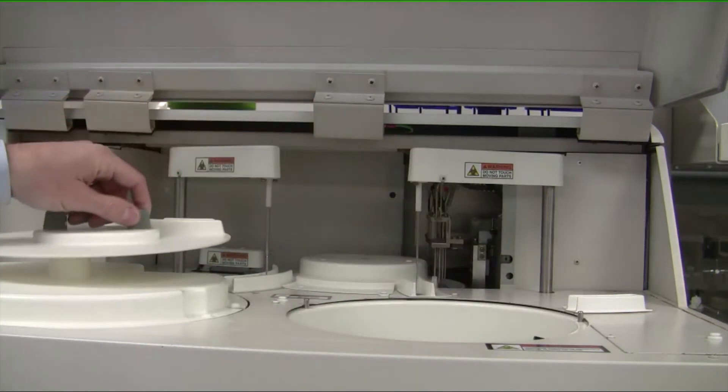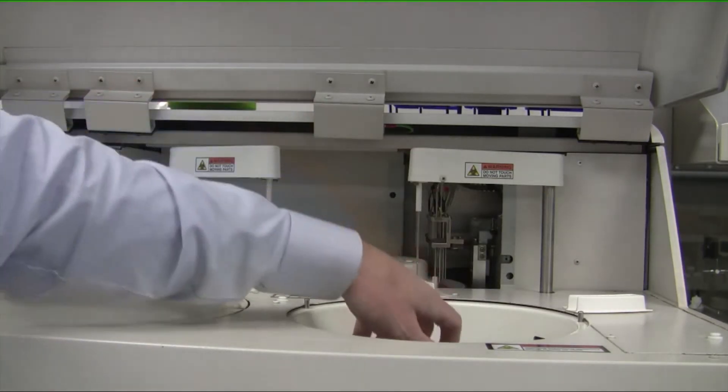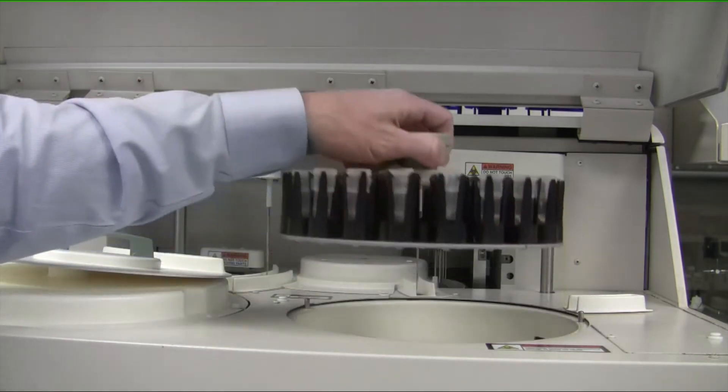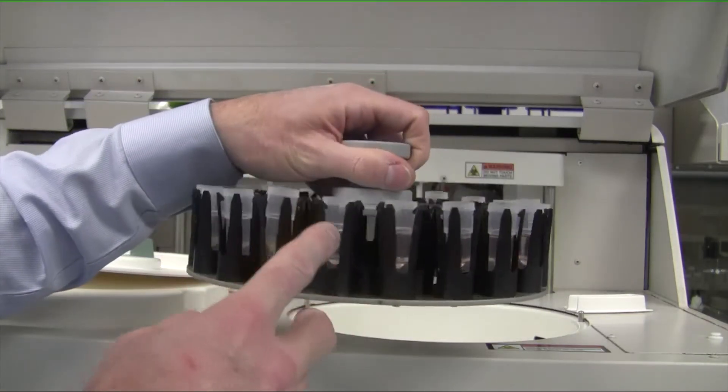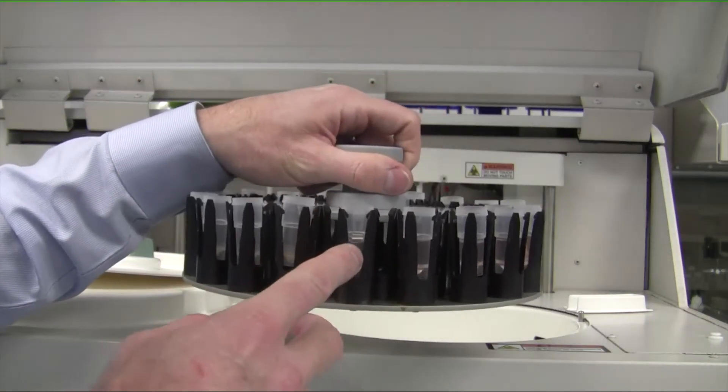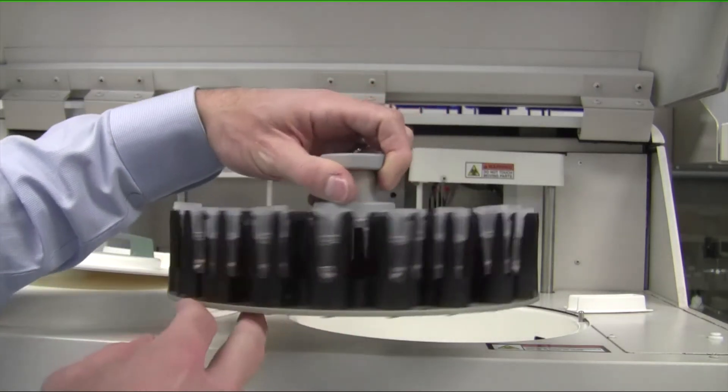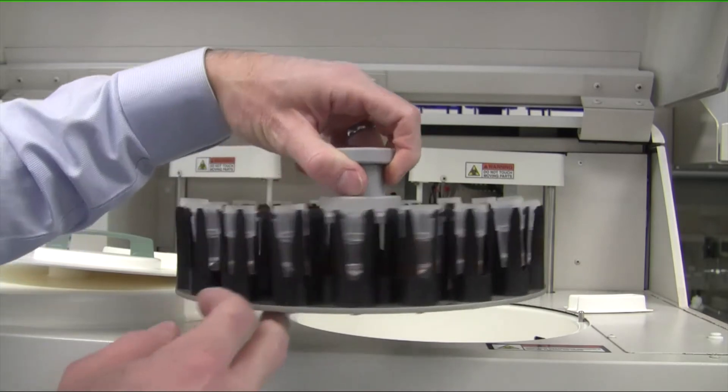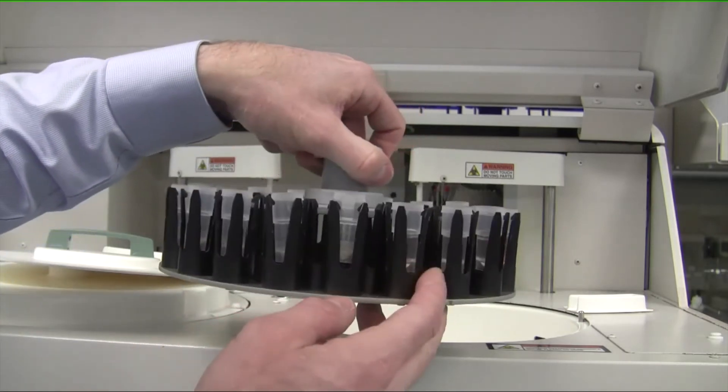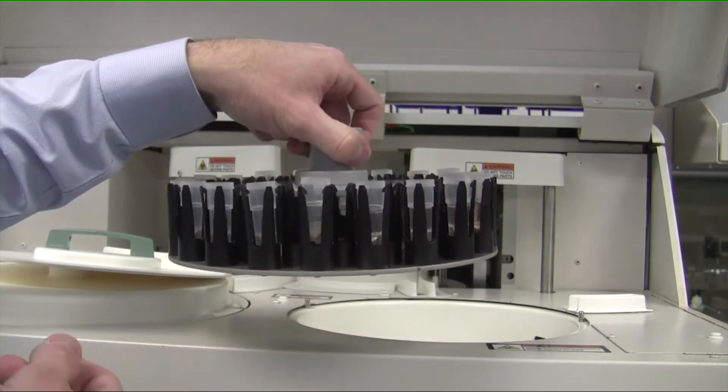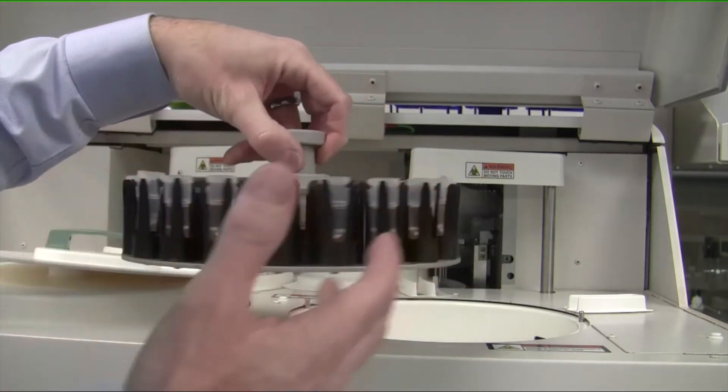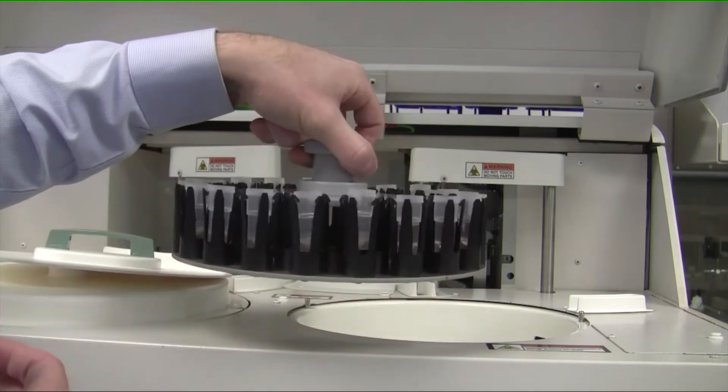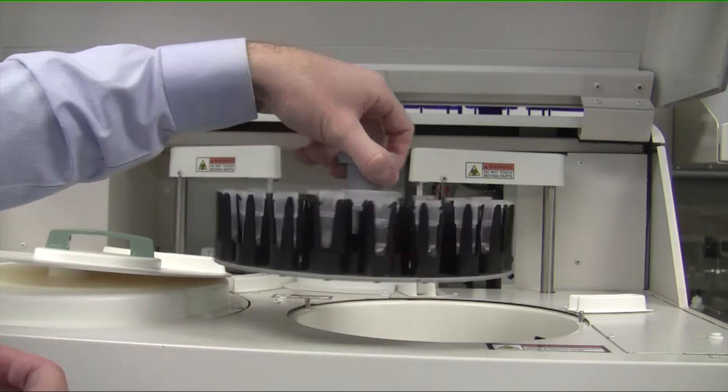Over here are the samples. You put your samples into standard sample cups. Various instruments have various sizes, mostly depending on the throughput, but also different numbers of samples.